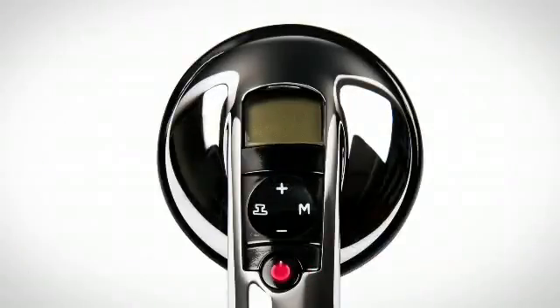To power your stethoscope on and off, press and release the power button. Your stethoscope will switch over to a power-saving standby mode when not in use. To reactivate, touch the chest piece to the patient or press any button.